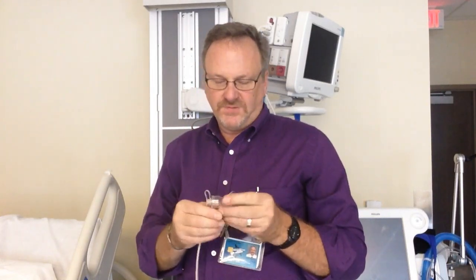The next piece of equipment we're going to discuss is the Aerogen Vibrating Mesh Nebulizer. This nebulizer is one of the newest technologies out there. It has a palladium mesh — just imagine that it has a mesh that vibrates up and down, and it creates millions of tiny, tiny particles in your medication.